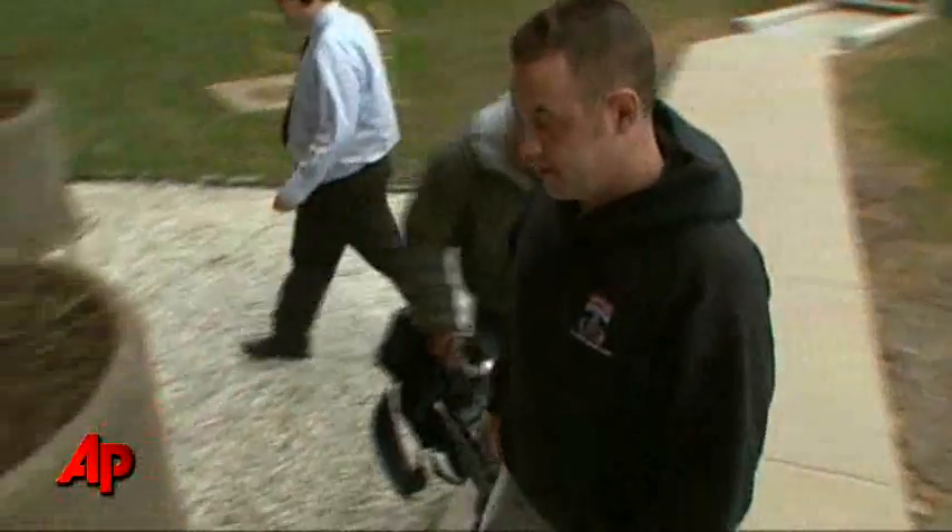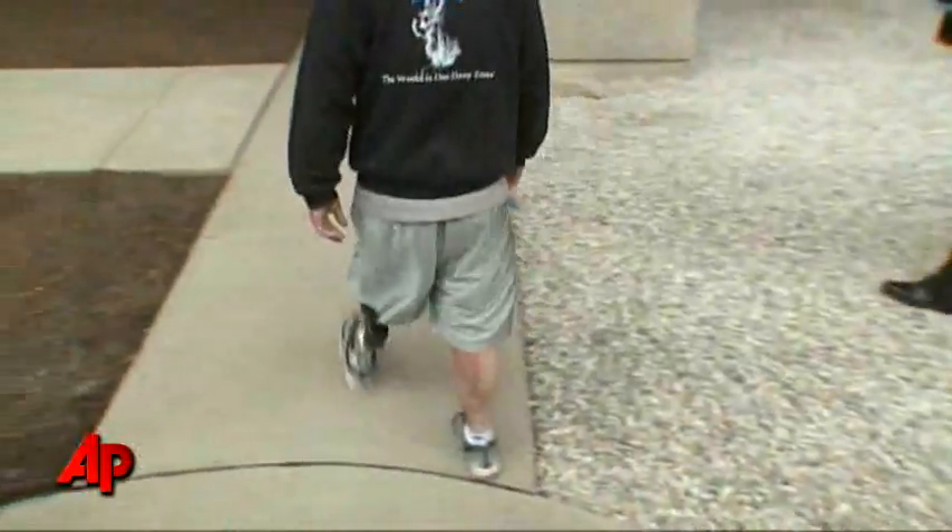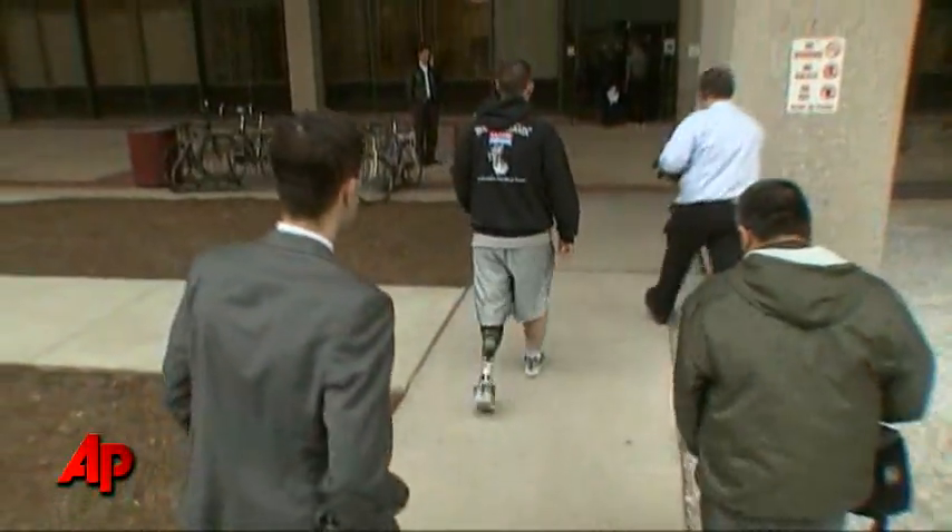This works pretty much on its own — the user controls it, but the actuators within the prosthesis actually help to propel the individual. The motors actually will carry a human body up to 260 pounds.